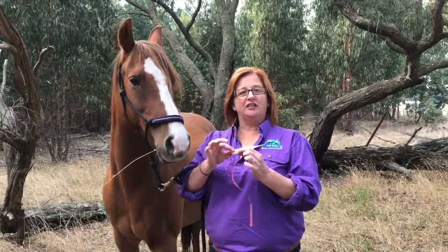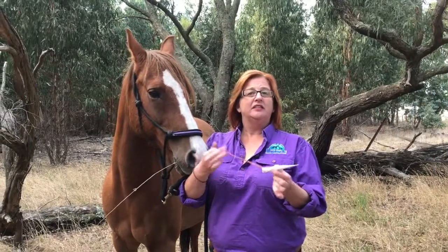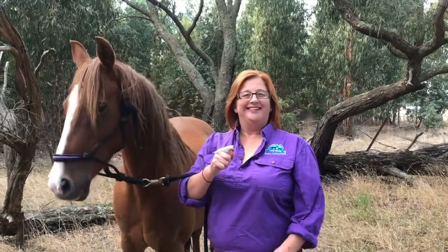Just make sure you tie a little string to the end of it. I just tie a little bit of elastoplast on, a bit of hay twine. Just make sure that you don't lose it. That's the tip of the day.